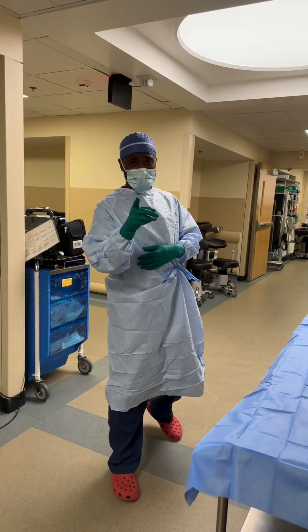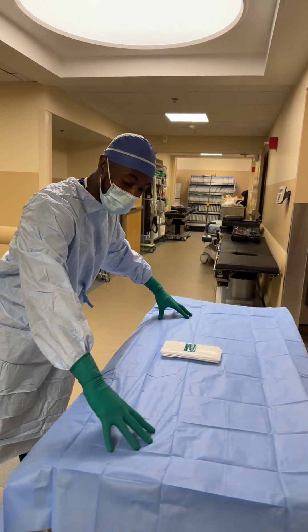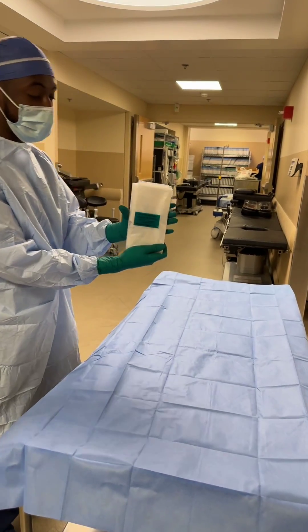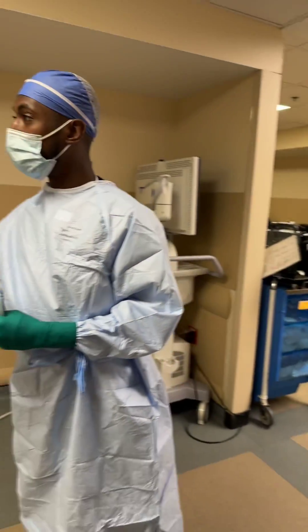What up? It's your boy, the Surgical Guru, and we're back with another video. I'm going to need you all to use your imagination. This is my back table — that's the drape on the back table, and then we have a C-arm drape. So what we're going to learn today is how to put a C-arm drape onto a C-arm.